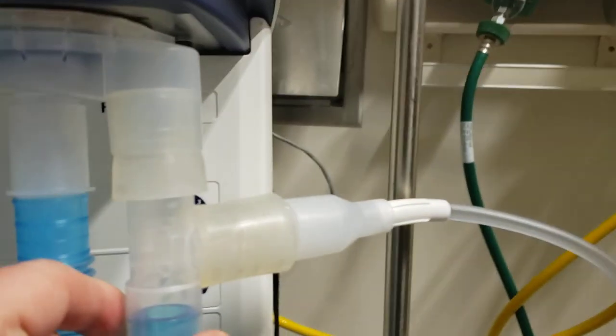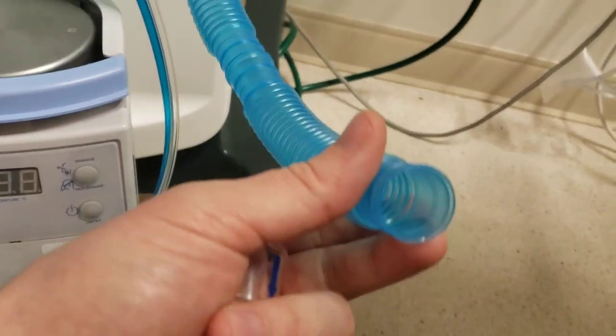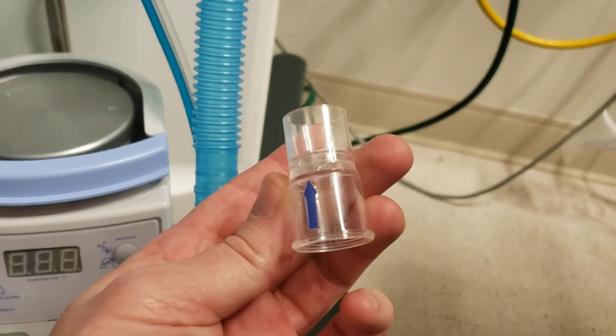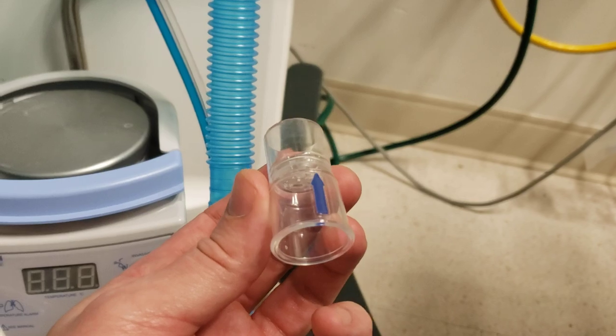This is just kind of our test rig here. Initially, this vents to the room. I tried to do a one-way valve, so it was keeping any expiratory gas from ever making it into the room, but this resulted in auto-triggering.